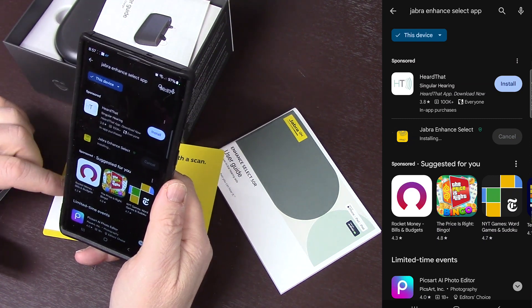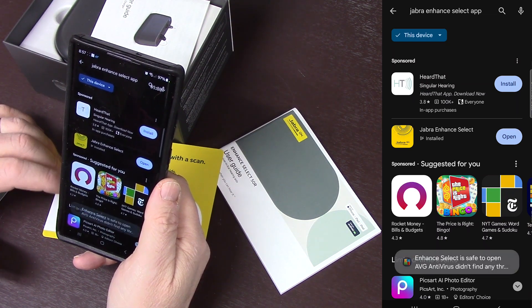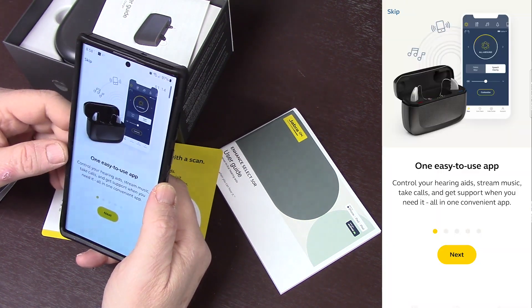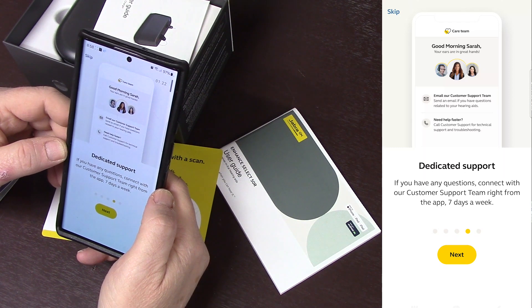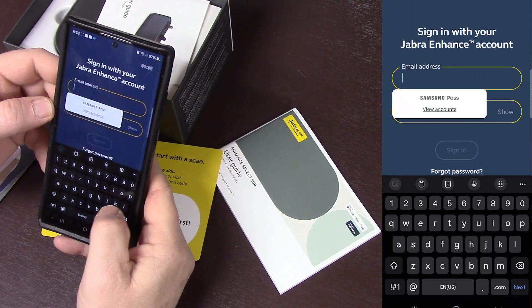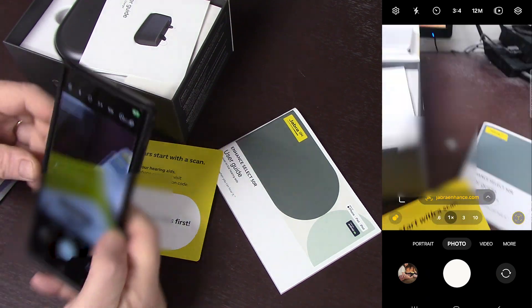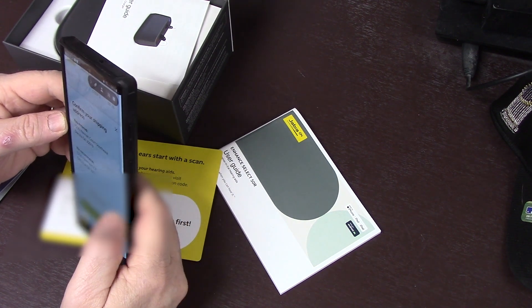While this is installing - I don't know if I mentioned it before, but this does come with some online audiologist help, so you're not just left out there on your own. Going ahead and opening it. Full control, sound quality, dedicated support - you can contact the customer support team right from the app, seven days a week. I need to create an account. Going back to activate it, then I hit activate hearing aids, confirm, use recommended settings.